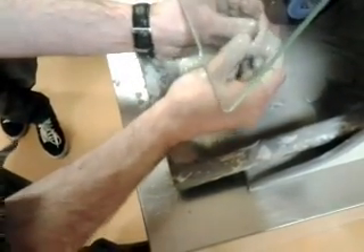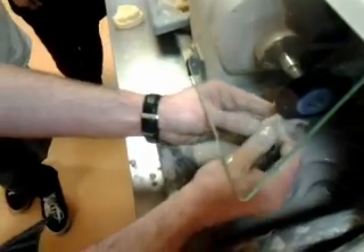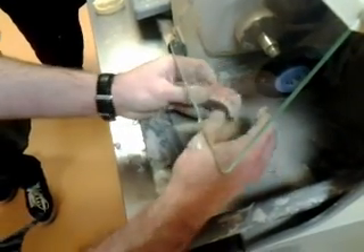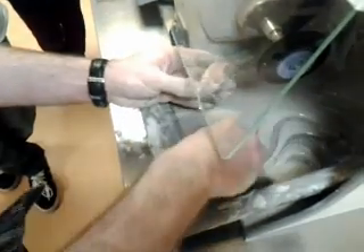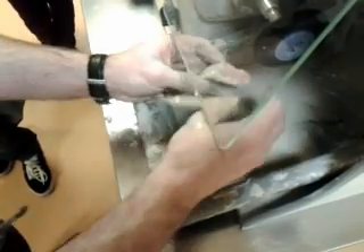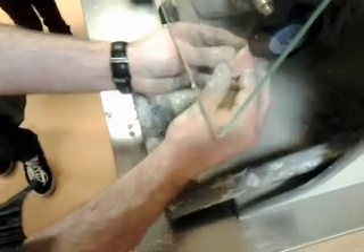The teeth are quite suitable for being positioned on the denture and sent out to the patient without any further polishing, so try and keep your pumice away from the surface of the teeth. Obviously you will encroach on the teeth when polishing your denture base.